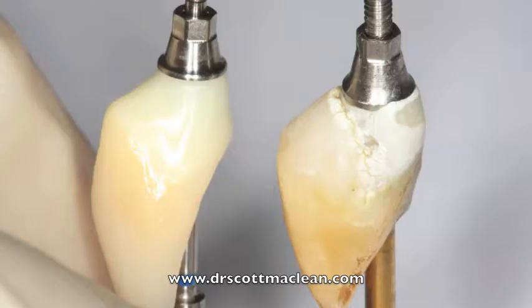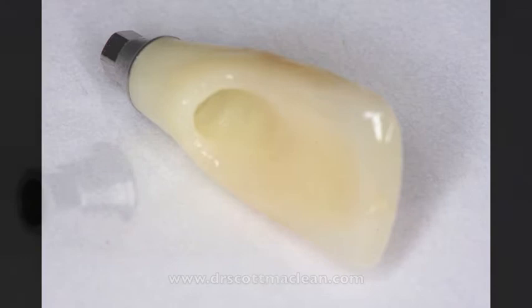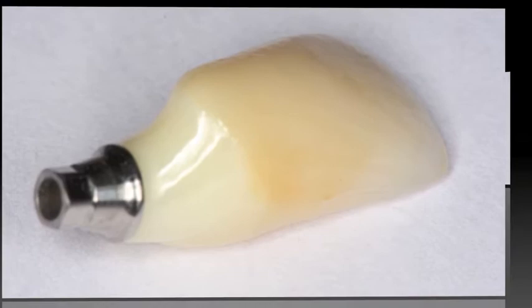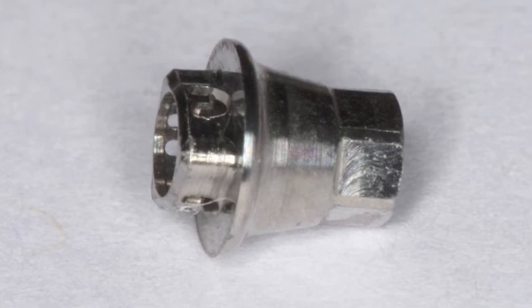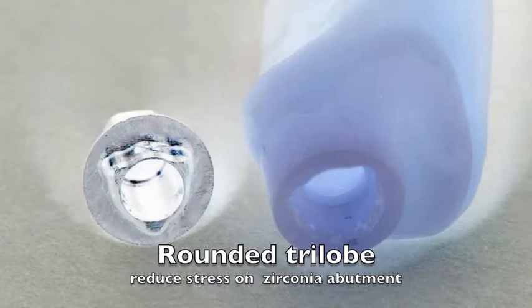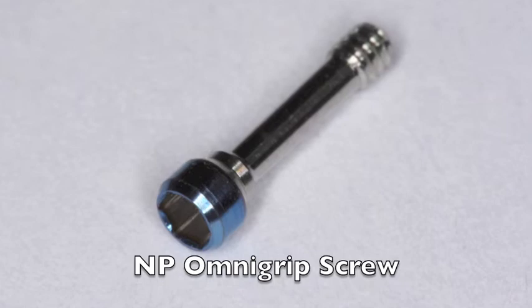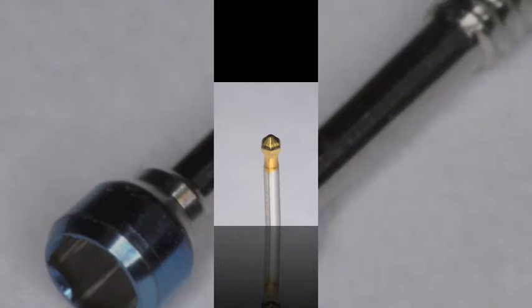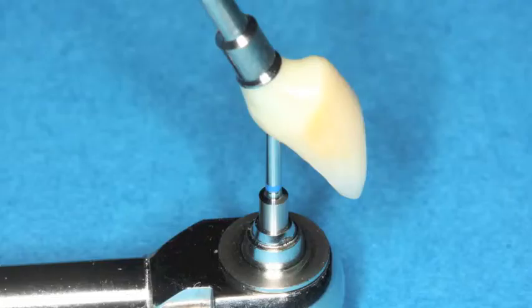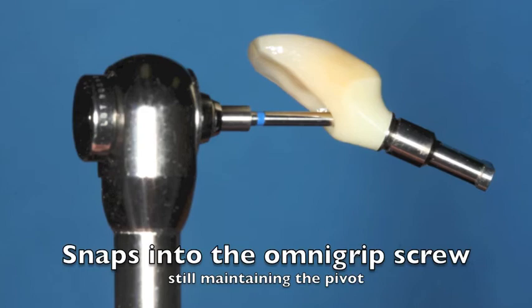We're able to create an abutment that looks exactly like the temporary, with the channel up the middle that's angulated and the metal piece on the end that goes into the implant. Looking more closely, it has a flat surface where the zirconia and abutment come together, and a hex on the other end with the conical connection. Inside the trilob component it's rounded on the sides — this is to minimize stress on the zirconia — so the flat surface of the zirconia sits down on the flat surface of the abutment creating a perfect system. The final piece is the Omnigrip screw, which can turn in different directions as you're putting it in, using the Omnigrip driver with a pivoting action on the tip. It snaps into the screw, which is very useful when going around corners or getting it into the oral cavity.